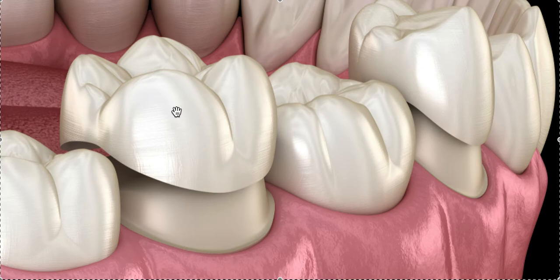So for example, this is tooth number 30 — lower right 7, actually, because that's lower right 6 and that's lower right 8. So this tooth has a crown. A crown is like a shell or a hat — a protective cover you put on a tooth that either had a big cavity, had a root canal, had a fracture, or something, to try to make it whole again. Here's the natural tooth, here's the shell.